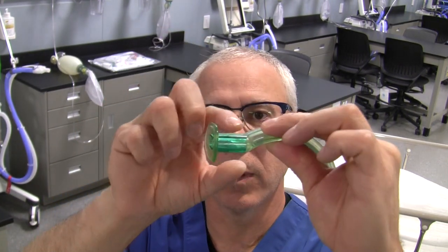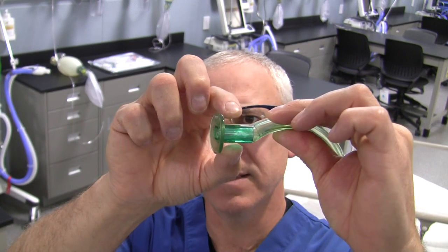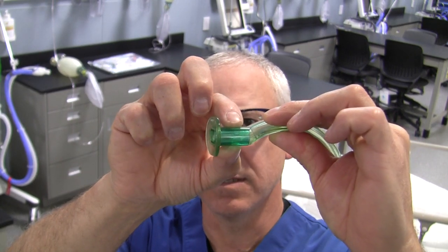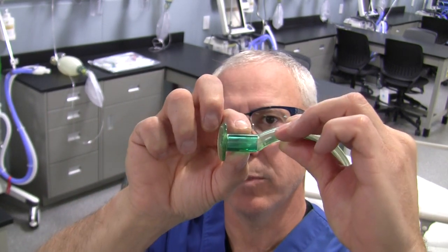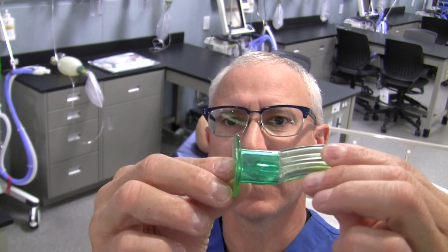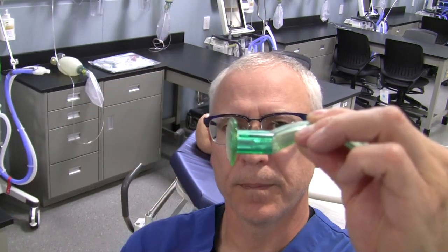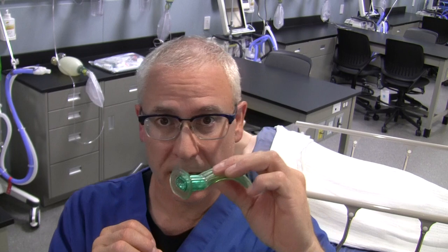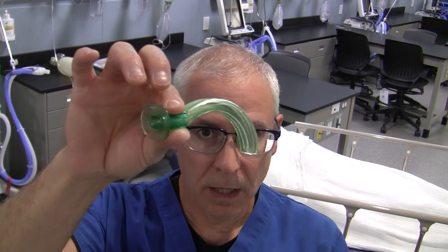The next part of the OPA is a really hard piece of plastic included in the design — this is the bite block. If a patient clenches down with their teeth or gums, they can't squish the OPA or occlude it, thus affecting patency.